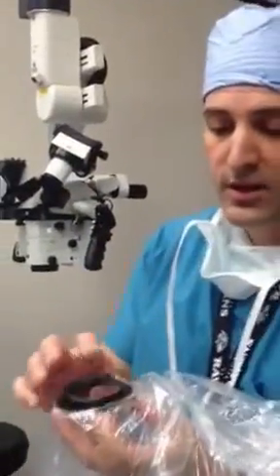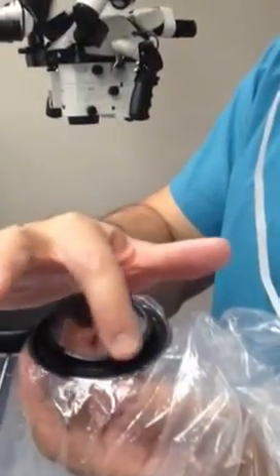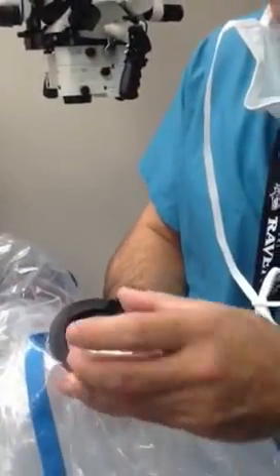We're going to learn how to put on the microscope drape on the Leica 5. Here's the plastic — take it close to right here. This is the eyepiece that goes on the microscope. It's got a flat portion. The flat portion goes by the surgeon's side. On the other side, there are tabs. The tabs are for your fingers.